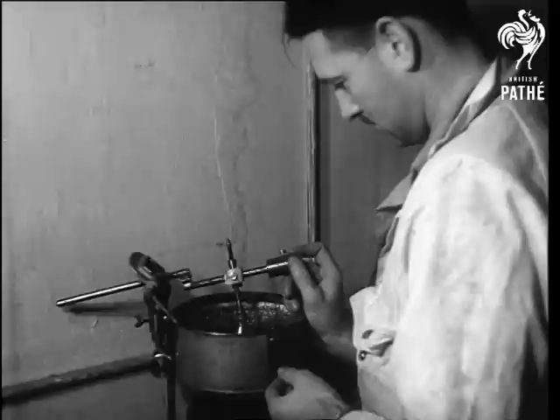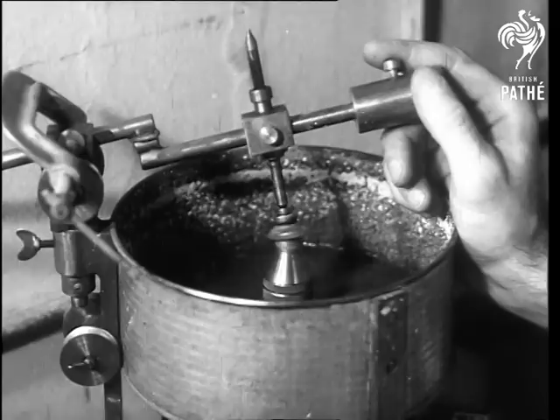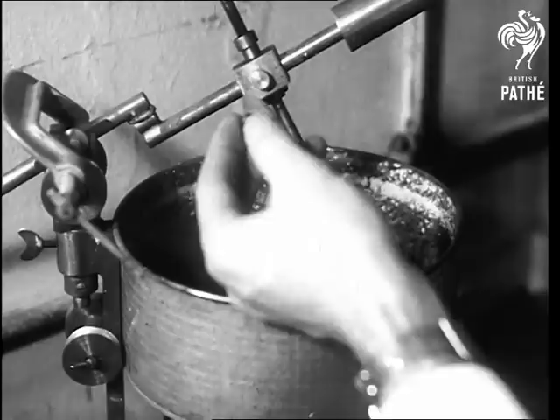The plastic is unbreakable and two lenses cost 45 guineas. In America, where the new look is popular, lenses cost 75 pounds. The inside surface of each lens is ground first — a delicate operation demanding a fine degree of precision.